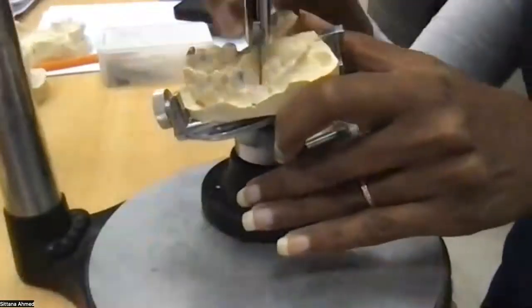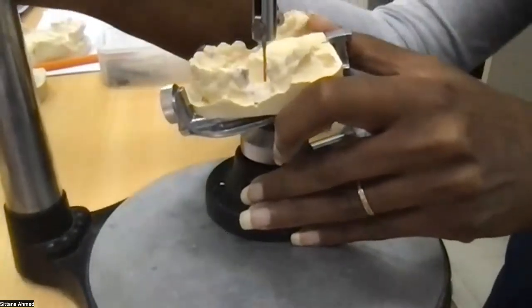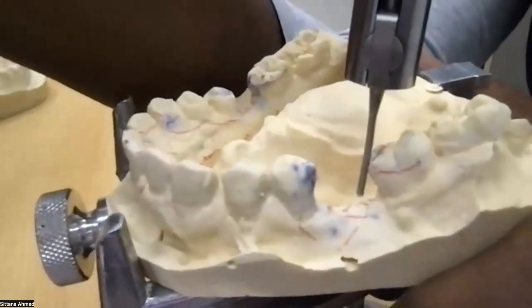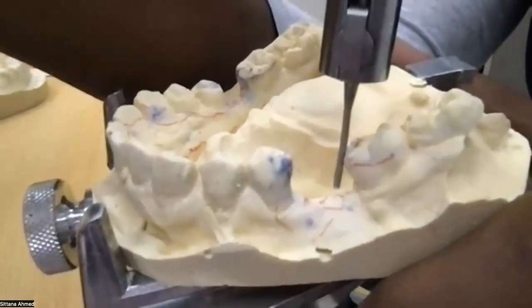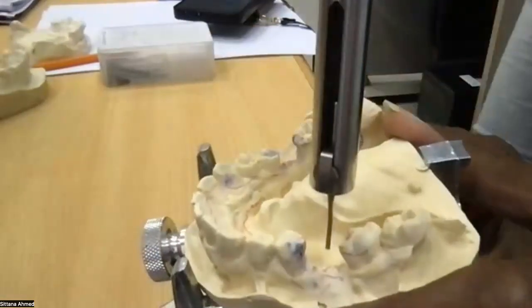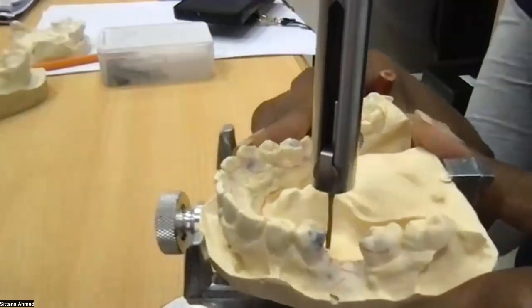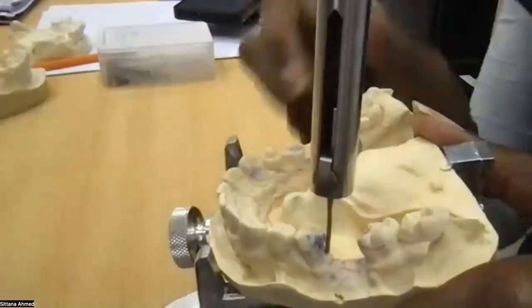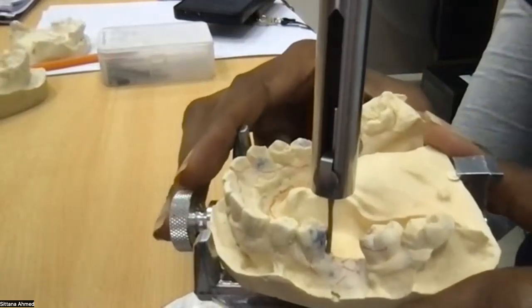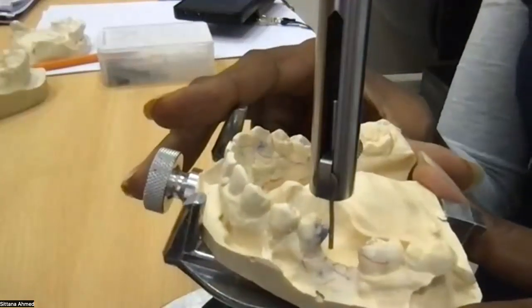Sorry, it's a little bit wobbly with the computer. I'm struggling, but I'm gonna get it closer. You can see how massive the undercut is under the proximal of the molar. So this will only happen proximally when I do this, and you can see now, when I'm doing an anterior, posterior tilt, observe the premolar undercut. Look, this is an anterior tilt, and look, I'm going to posterior tilt. You can see that the undercut completely changed.